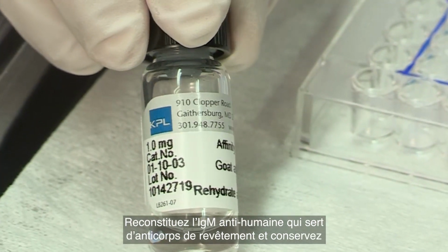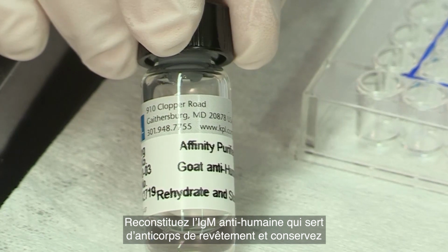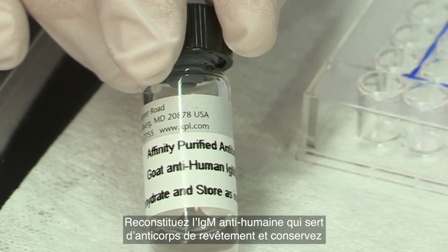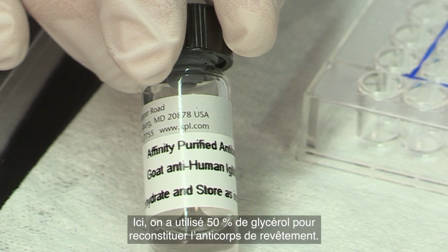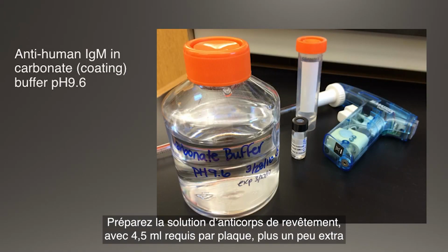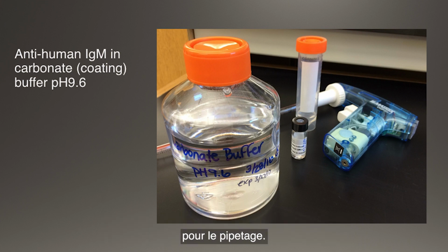Reconstitute the anti-human IgM, which serves as the coating antibody, and store according to the manufacturer's instructions. Here we have used 50% glycerol to reconstitute the coating antibody. Prepare the coating antibody solution, where 4.5 ml is required per plate, plus a little extra for pipetting.